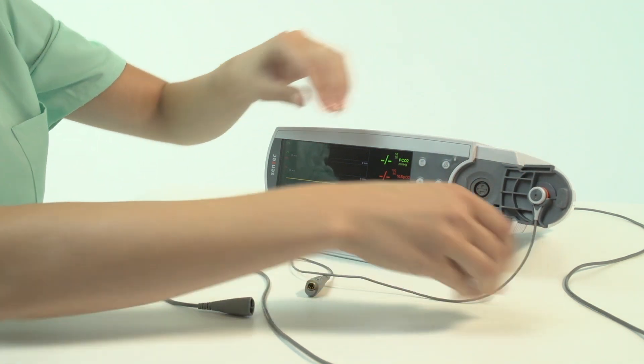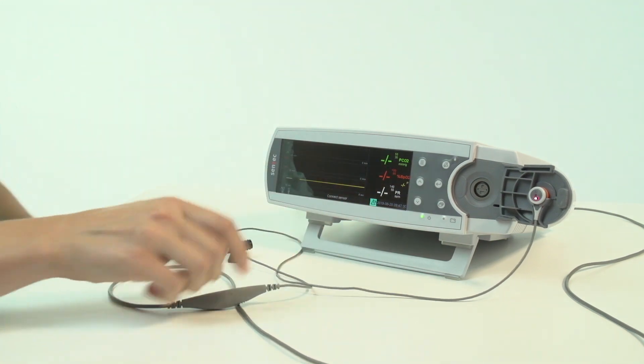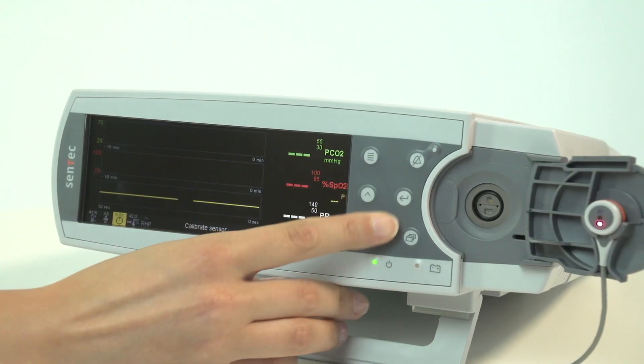Reconnect the sensor and confirm the membrane change on the monitor by selecting Membrane Change Done in the third menu option.